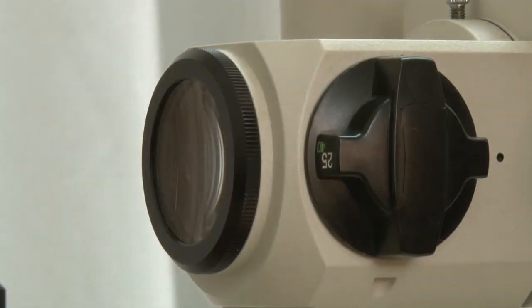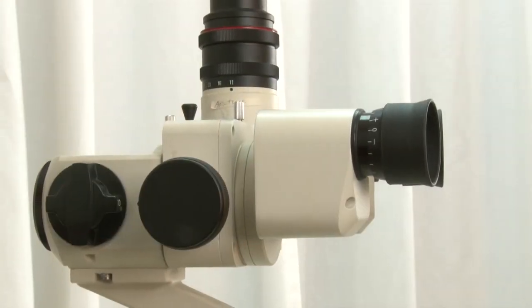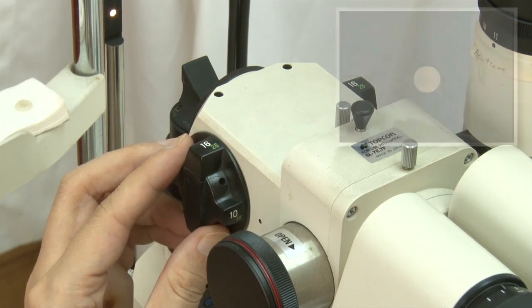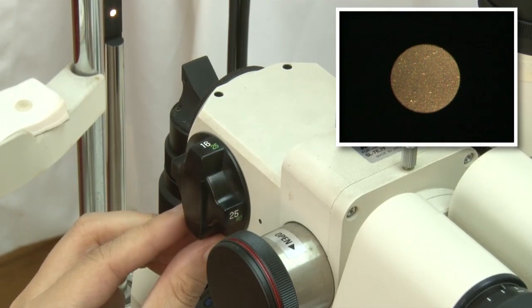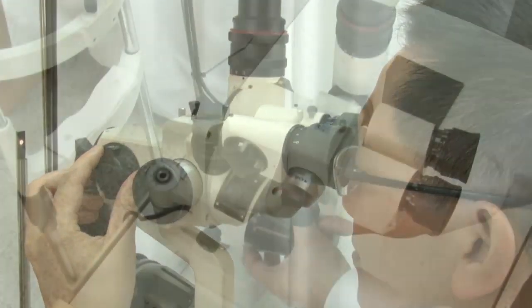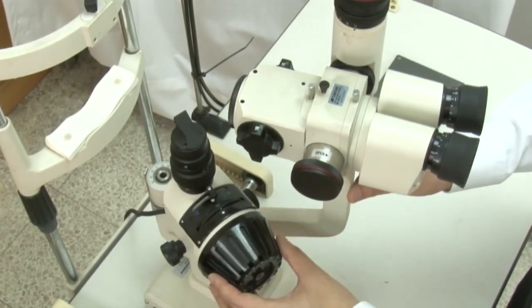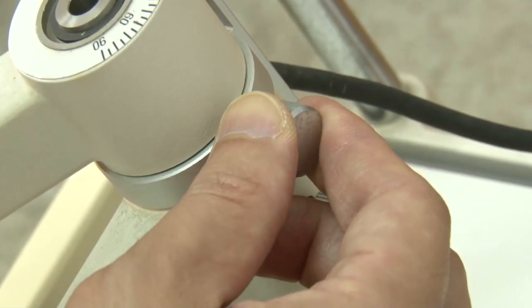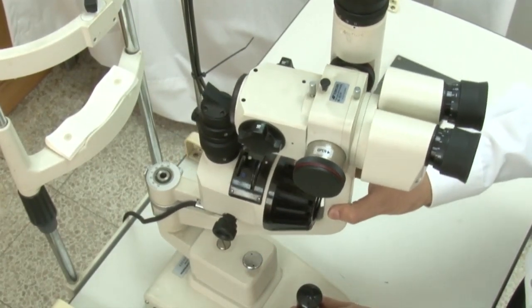The observation system is divided into two parts. First, a microscope consisting of eyepieces. Second, a magnification changer. The microscope, together with different magnifications, provides the best view of stereoscopic images. The observation system and illuminating system rotate about a common axis as a single unit, or move independently to create different angles between the illumination and observation systems, allowing different examination techniques.